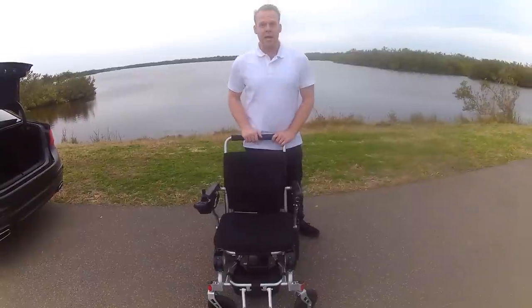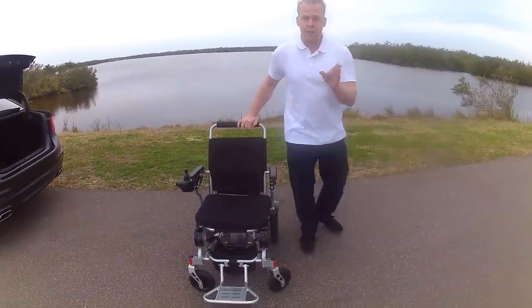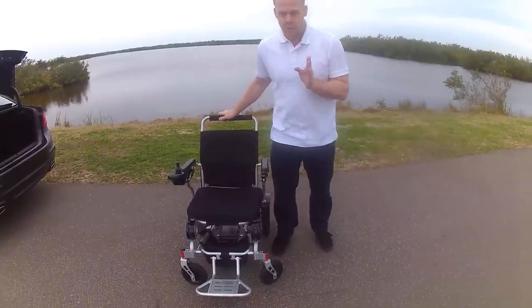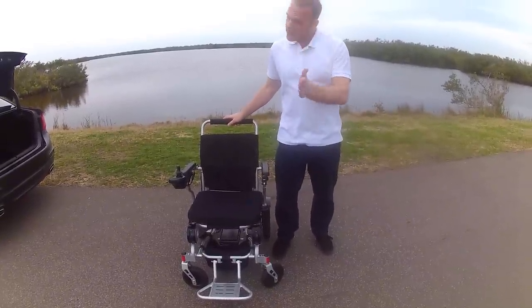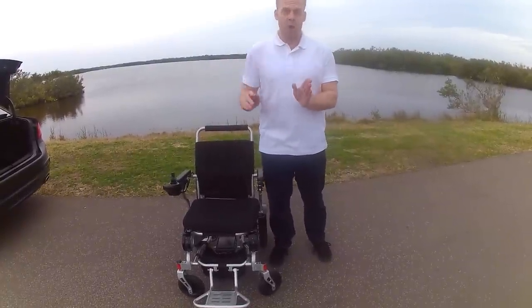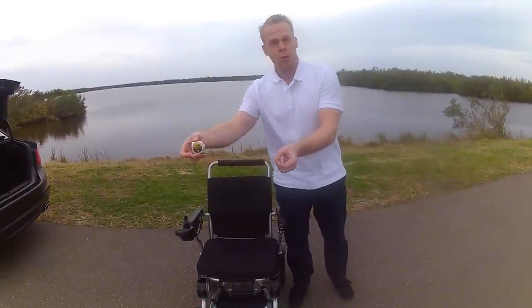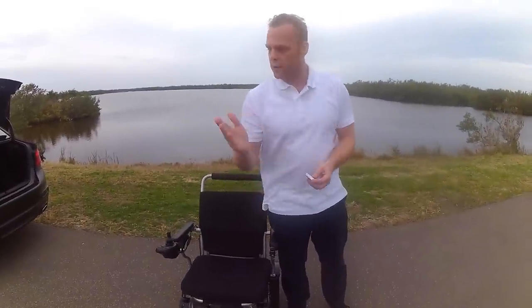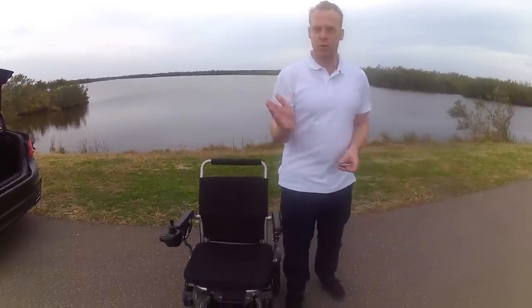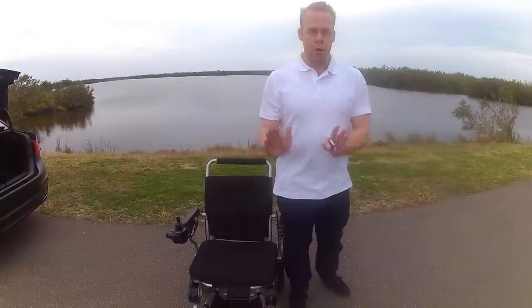In this video, we're going to show you everything about the Eagle. It might take a little bit of time, but you shouldn't have any questions at all. We're going to take the tape measure out, give you measurements, give you specifications, and give you demonstrations. You will literally know everything.